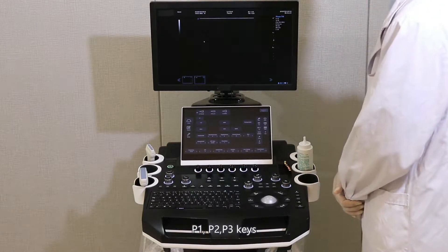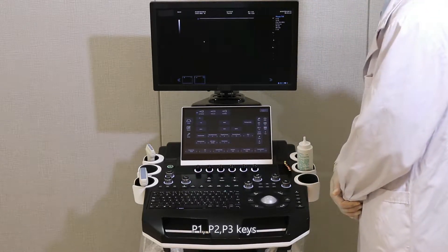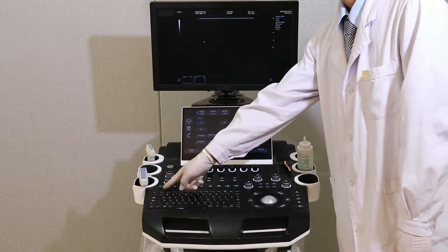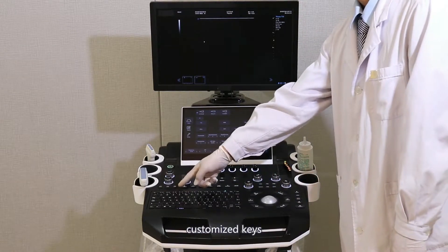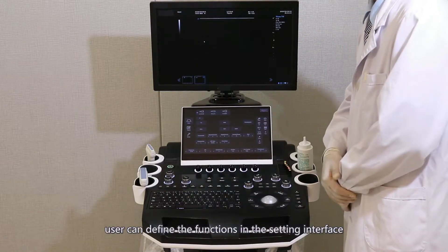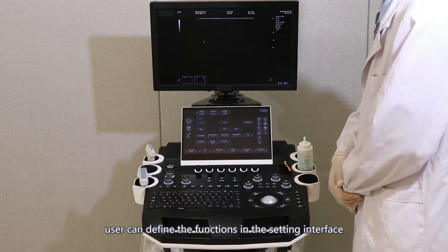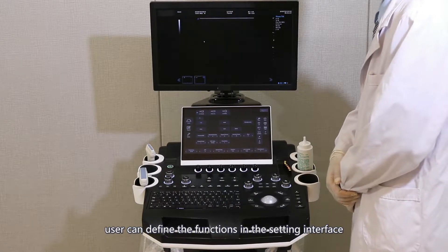P1, P2, and P3 keys are customize keys. Users can define the functions in the setting interface.